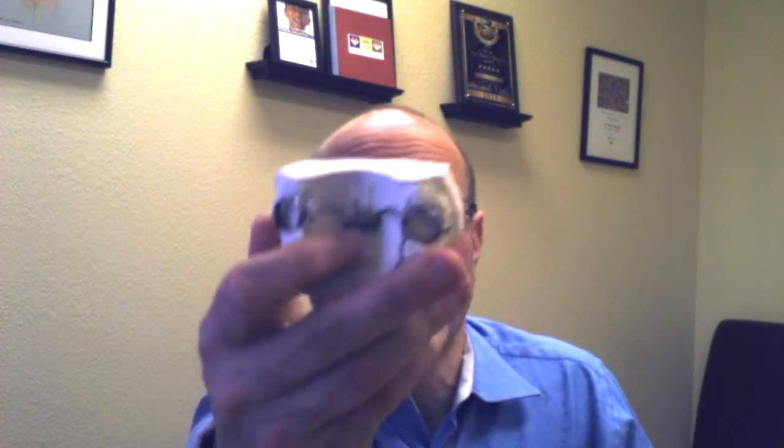So don't be surprised if you bring your child in for early orthodontic treatment and we recommend an expander — that we'll be talking about an appliance that might look like this for your child's mouth, whose purpose will be to expand their upper palate or upper jaw to address those issues of crossbite and make for the back teeth to have a more proper bite and adjustment to their mouths. Hope that helps answer some of your questions about expanders, and look for more videos from us about answering commonly asked orthodontic questions.